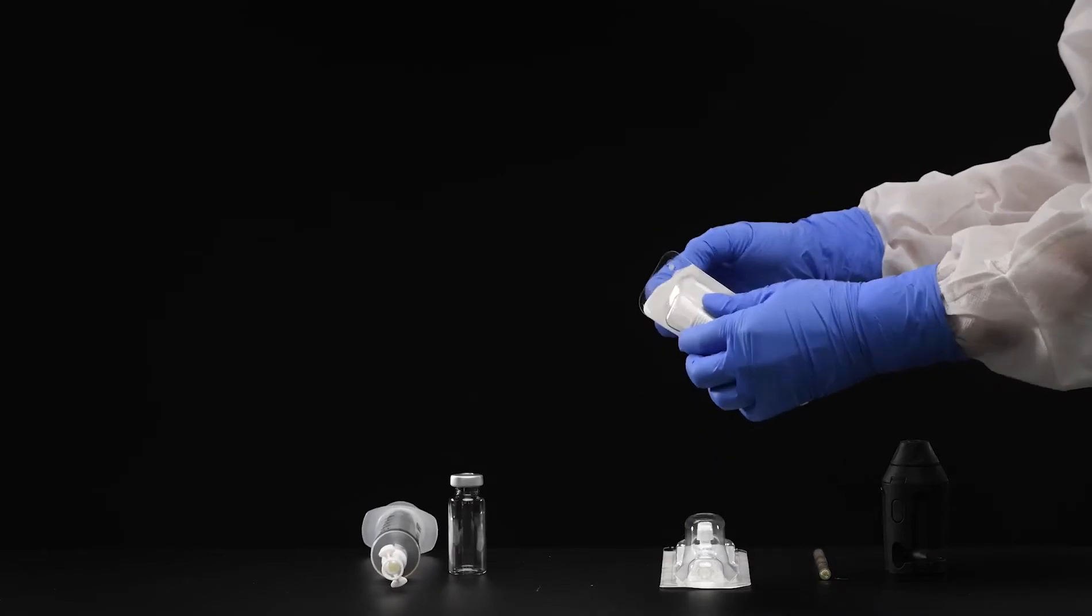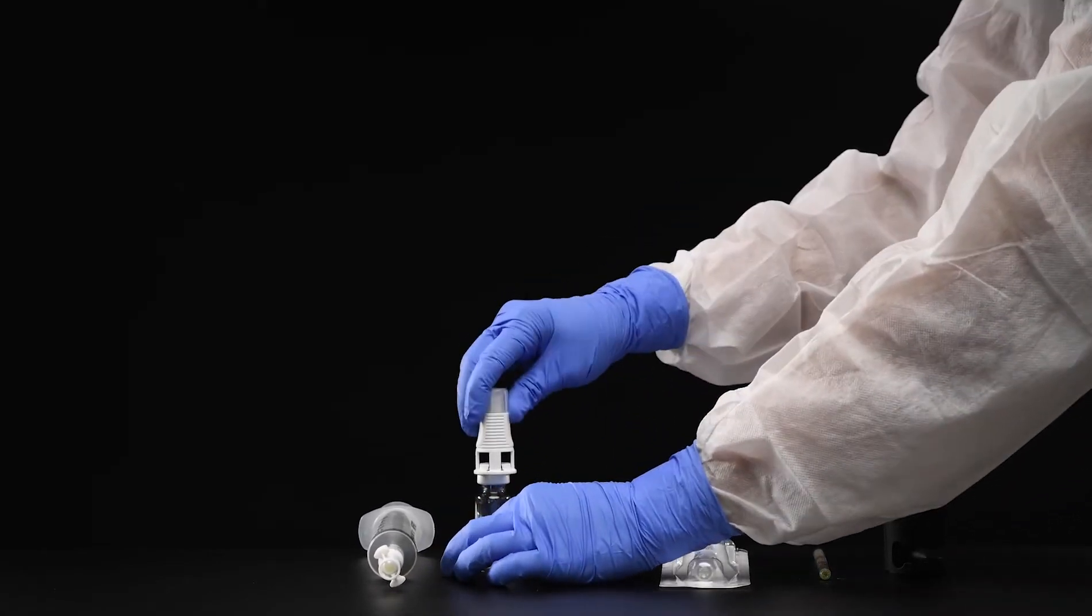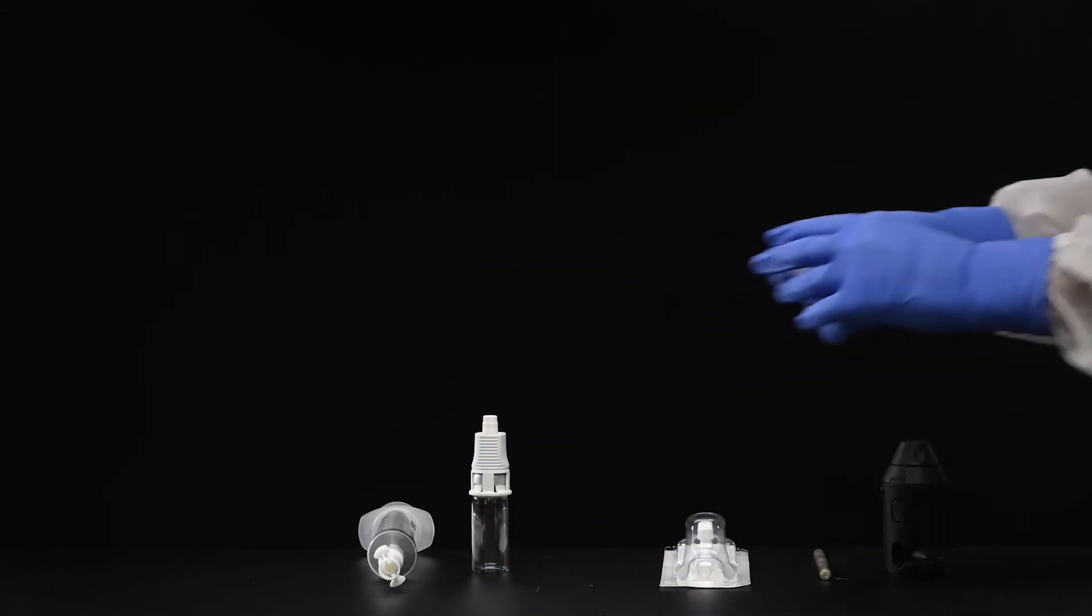Remove the CHEMFORT vial adapter from the package and connect the vial adapter to the vial. A simple click and remove the cap.